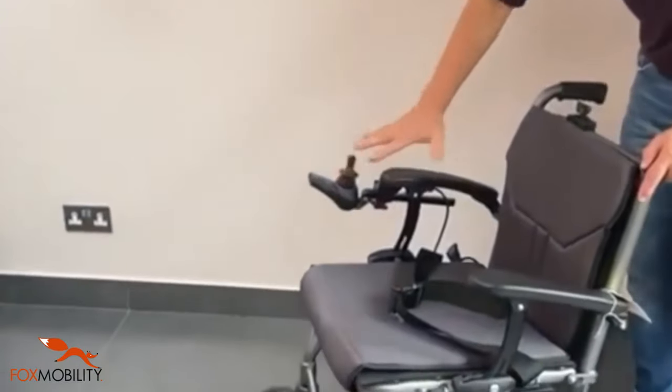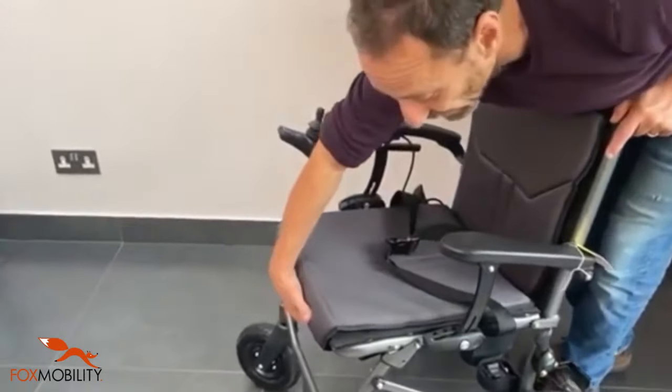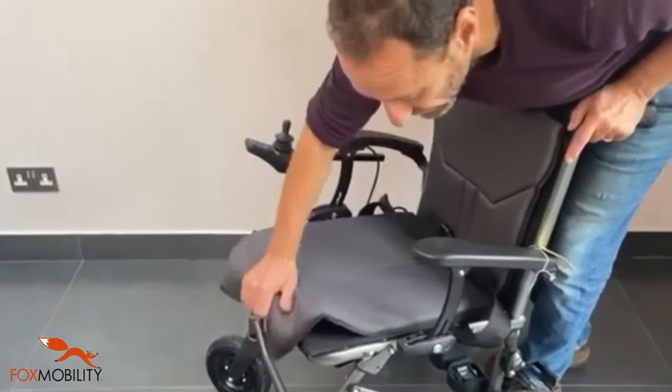Very nice small controller, you've got rear padding and a very comfortable seat and you've got adjustability there as well — comes off easily.